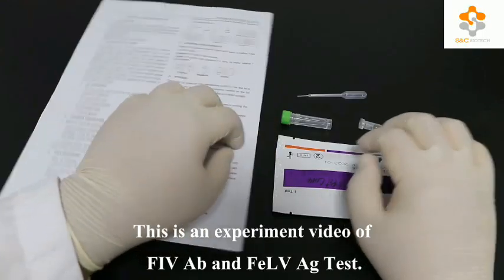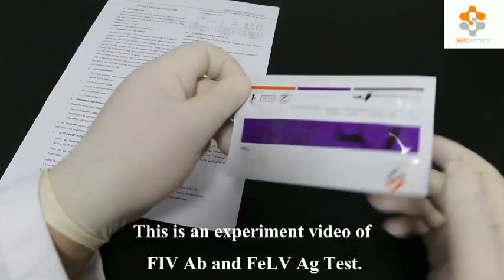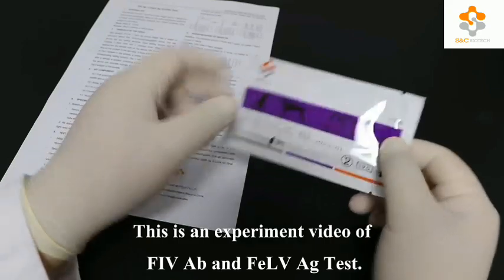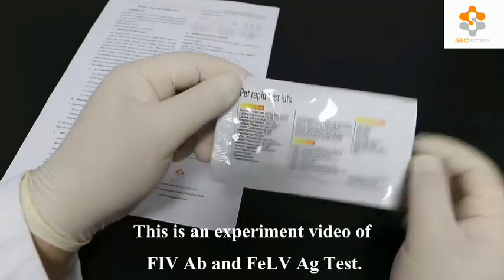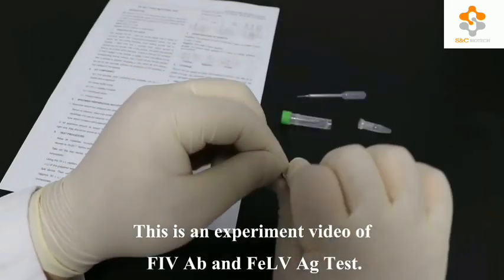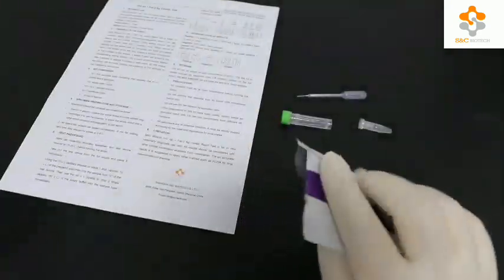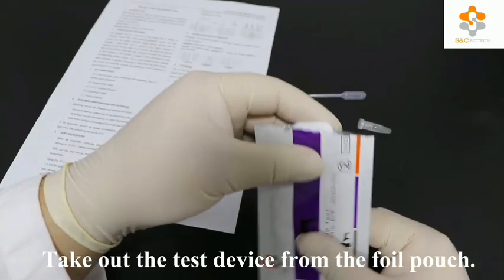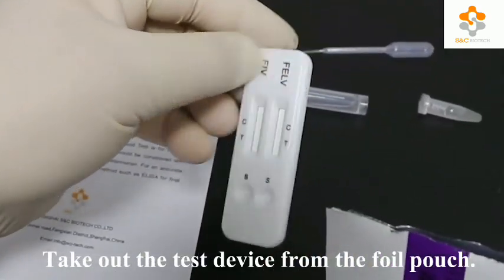This is an experiment video of feline immunodeficiency antibody and feline leukemia virus antigen test. Take out the test device from the foil pouch.